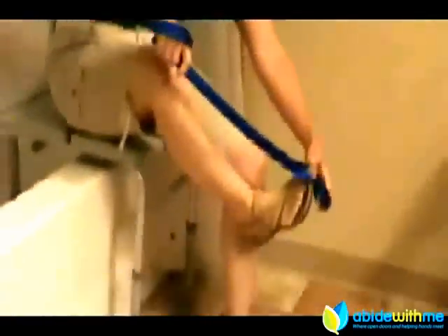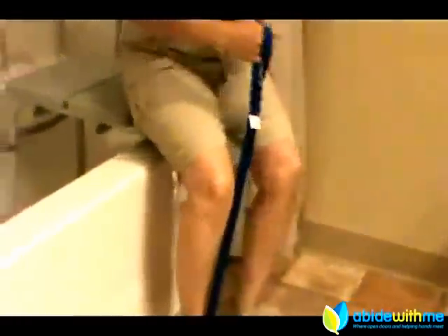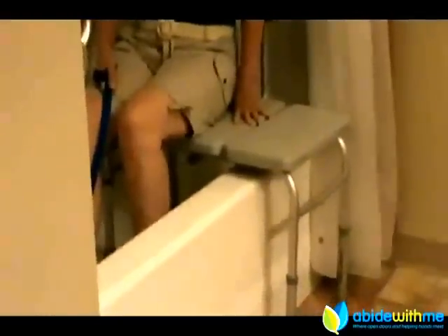Sometimes people have a lot of weakness and literally cannot lift one of their legs over the edge. For that, there's a thing called a leg lifter — very appropriately named. They would do the same thing: wiggle back as far as they can, and this semi-rigid device helps them lift that leg over right into the tub, then scoot over and get comfortable.